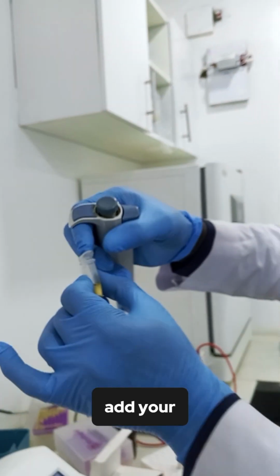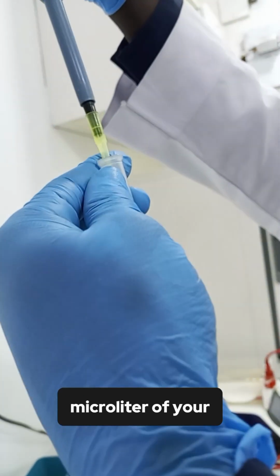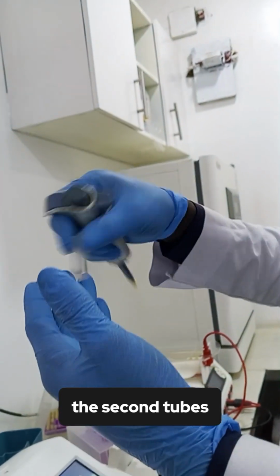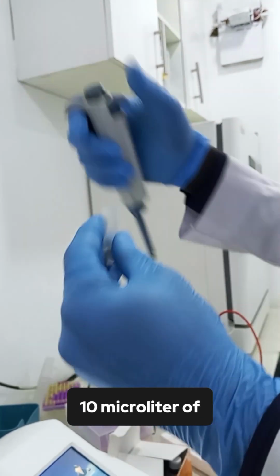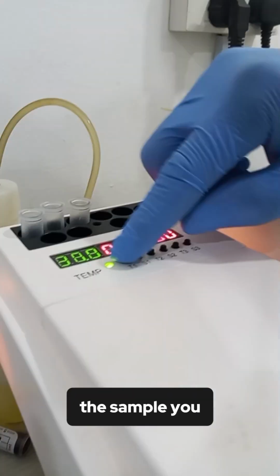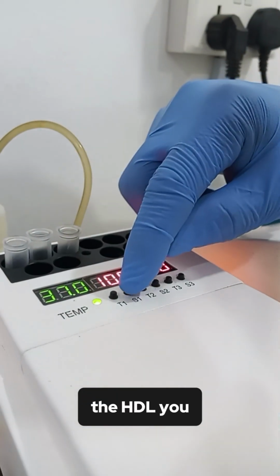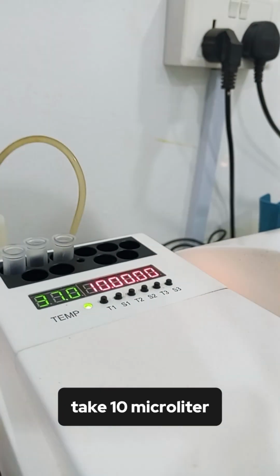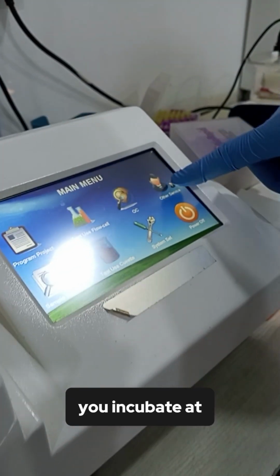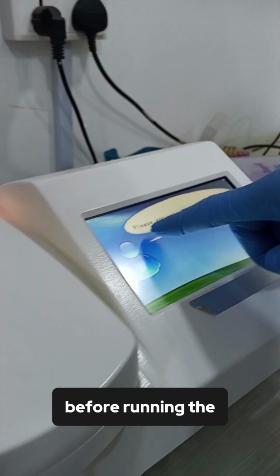Then you add 10 microliter of your HDL standard to the second tube, and you add 10 microliter of your supernatant, that is the sample you spun containing the HDL. You take 10 microliter and add to the test tube. You incubate at 37 degrees centigrade for 10 minutes before running the test.